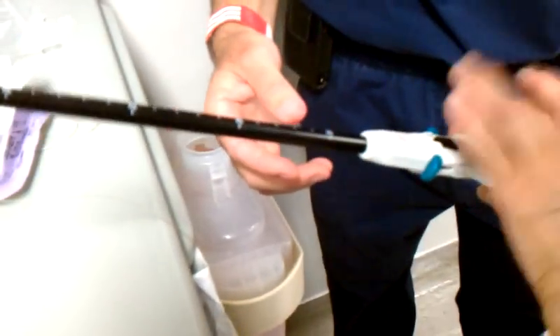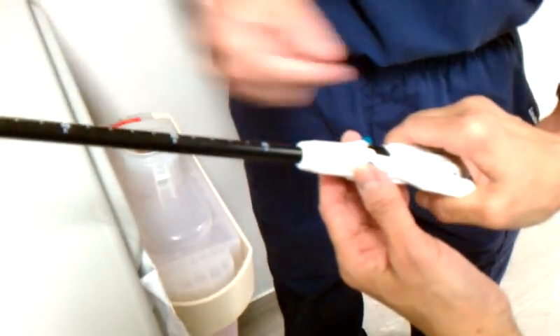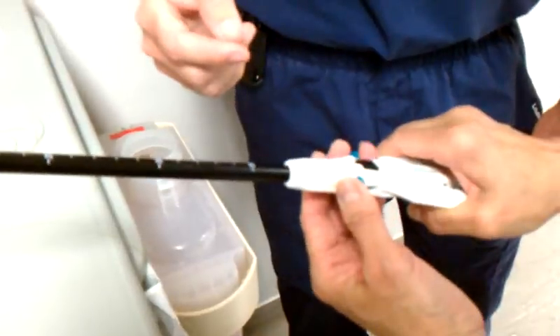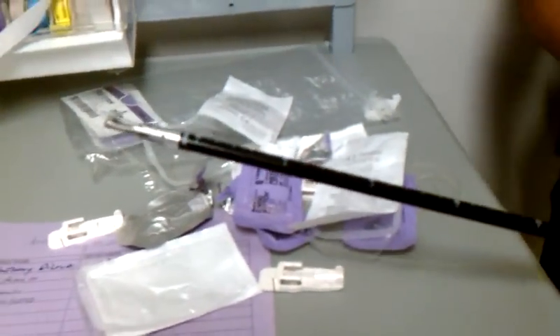So I still clip this one? You don't have to. But you've got to squeeze the handle to toggle it. Before I put it like this — yep — and then let go. Now squeeze it again. Now push this down. Now let go. And then let go.